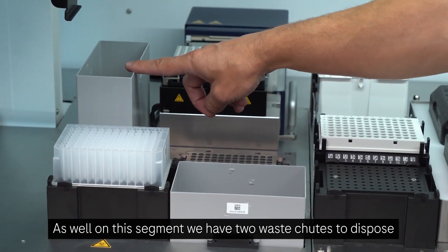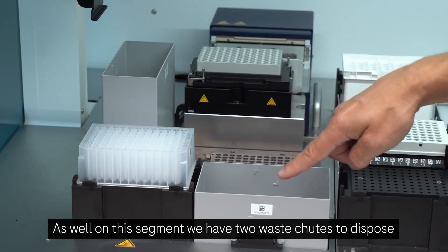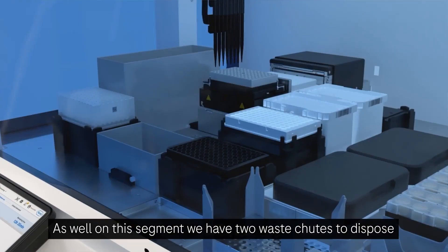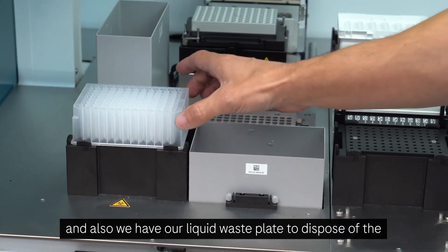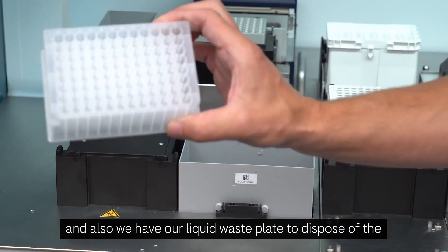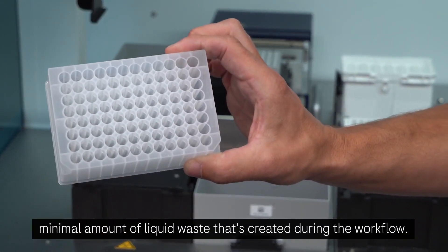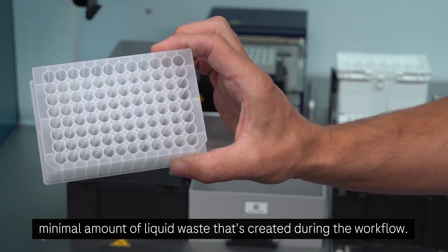As well on this segment, we have two waste chutes to dispose of the tips and the used plate during the process. And also, we have our liquid waste plate to dispose of the minimal amount of liquid waste that's created during the workflow.